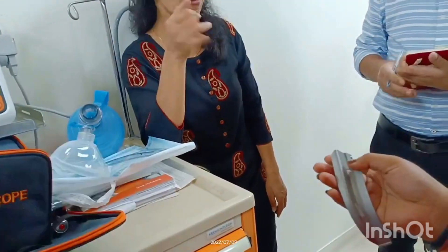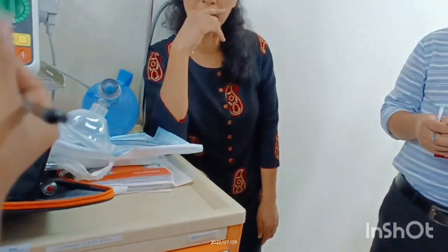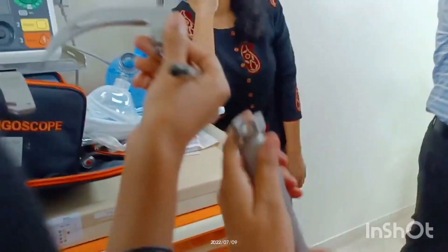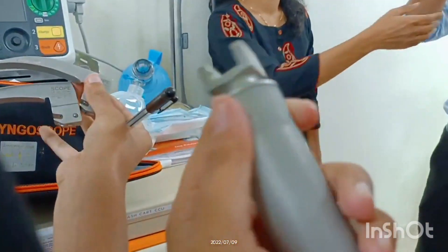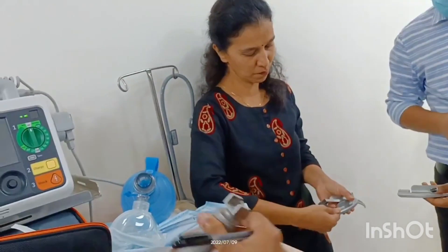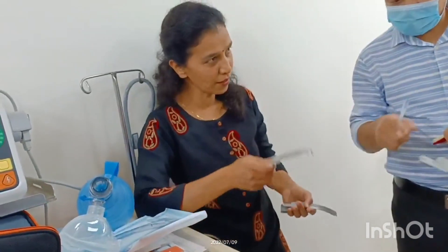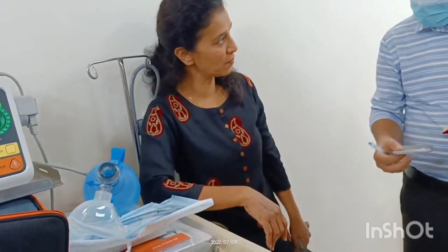Look at the number on the blade. This is a MAC 4 blade — the larger one. The sizes go from smaller to larger: MAC 2, MAC 3, and MAC 4 — those are the sizes.